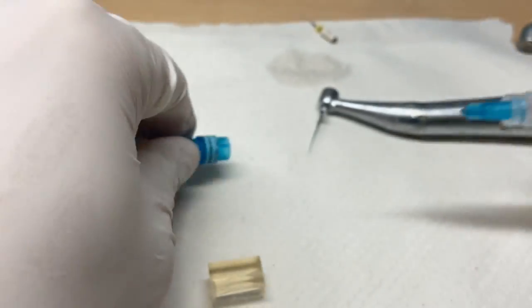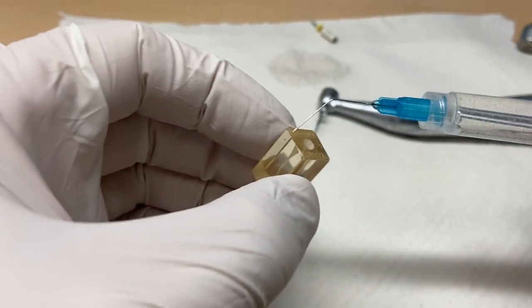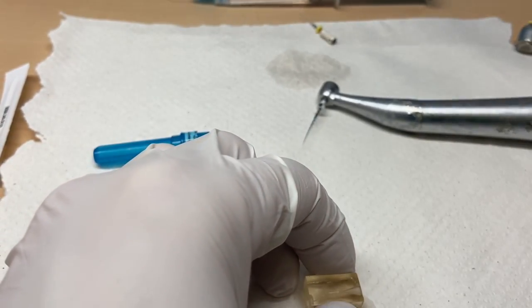Okay, let's make it a little more realistic. Let's add a little bit of irrigant. We're going to bend our needle a little bit. And then we'll place it in here. Get a little bit of irrigant down. Boom, we're done. So the next stage.